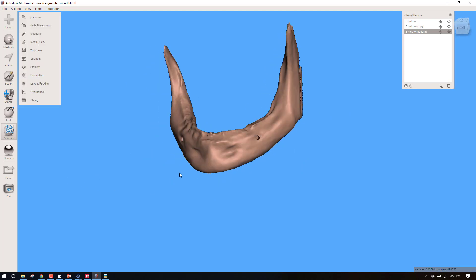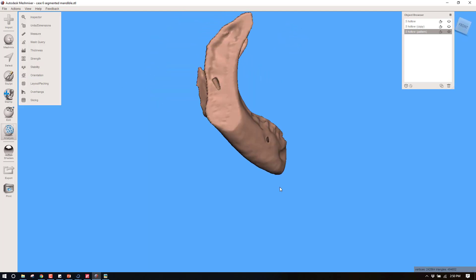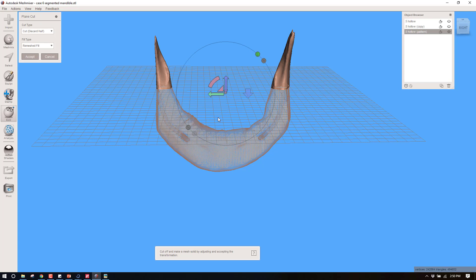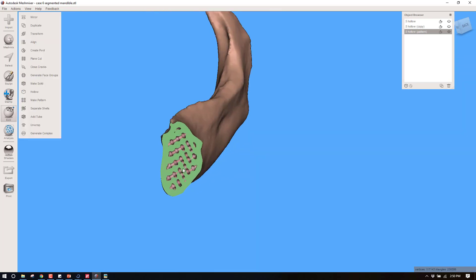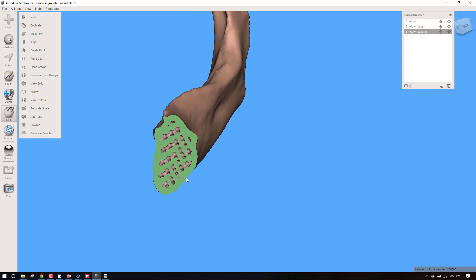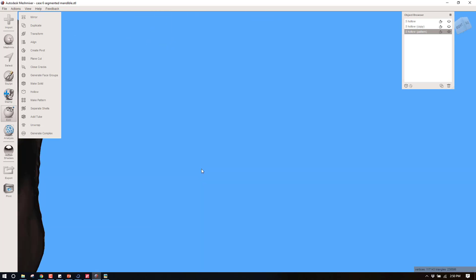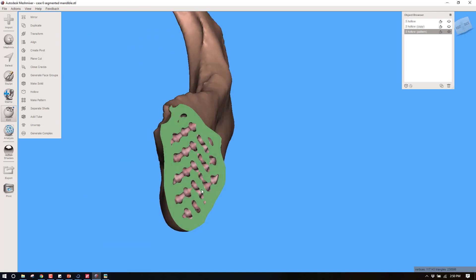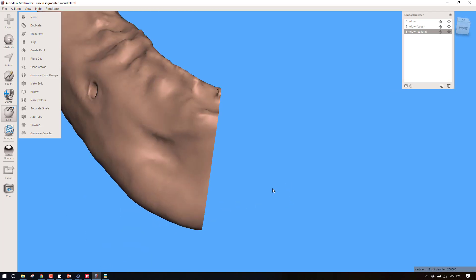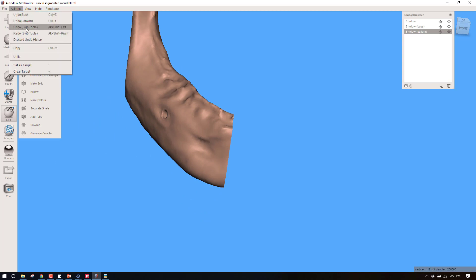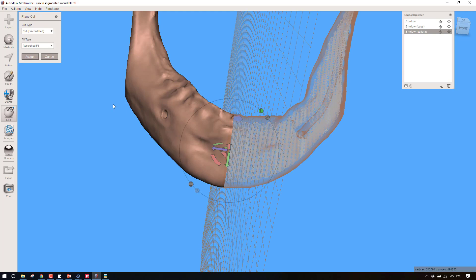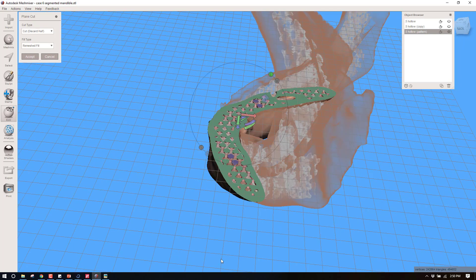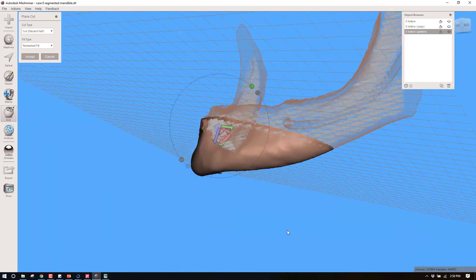Let's just take a look at this in cross-section. If you printed this it's just going to look like this from the exterior, but let's see what it would look like interior. Plane Cut. We can see that now this has a nice hollow interior and we'll be able to drill into this and everything should be very much like a real mandible. You could look at it maybe from a different dimension. And again you see all this.